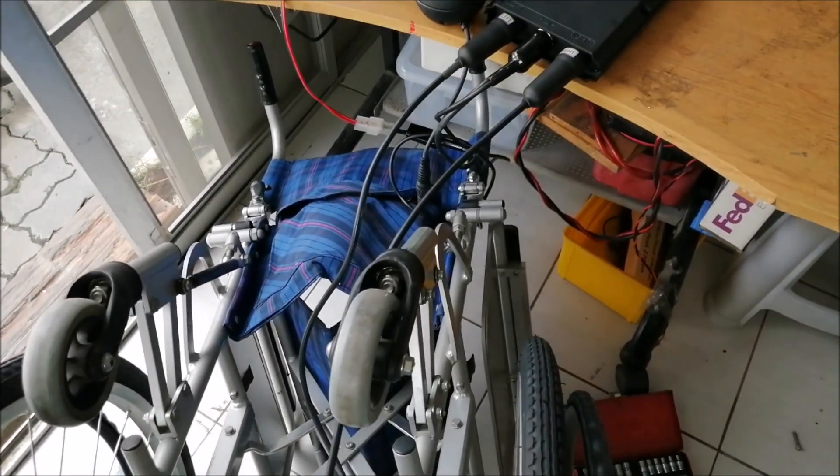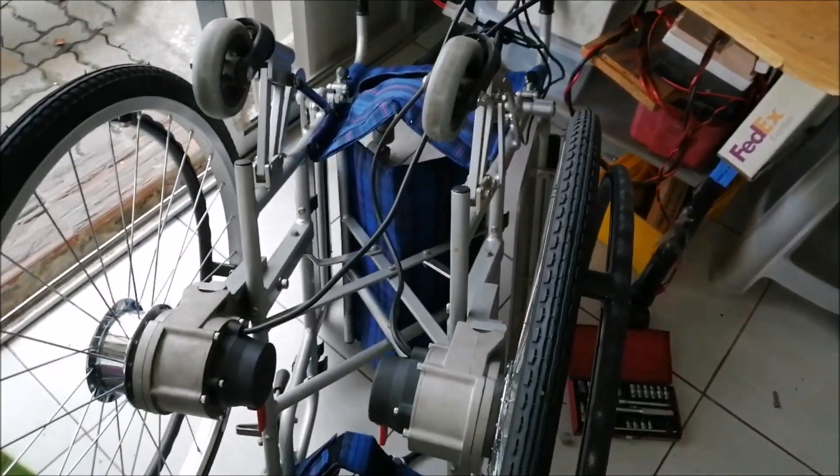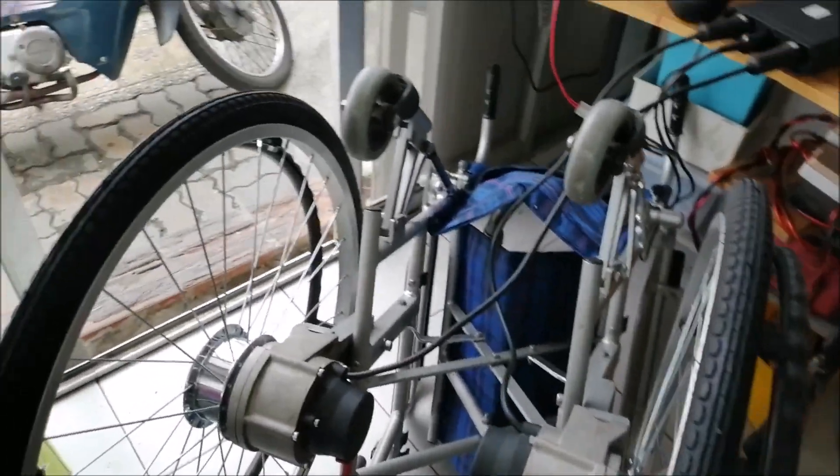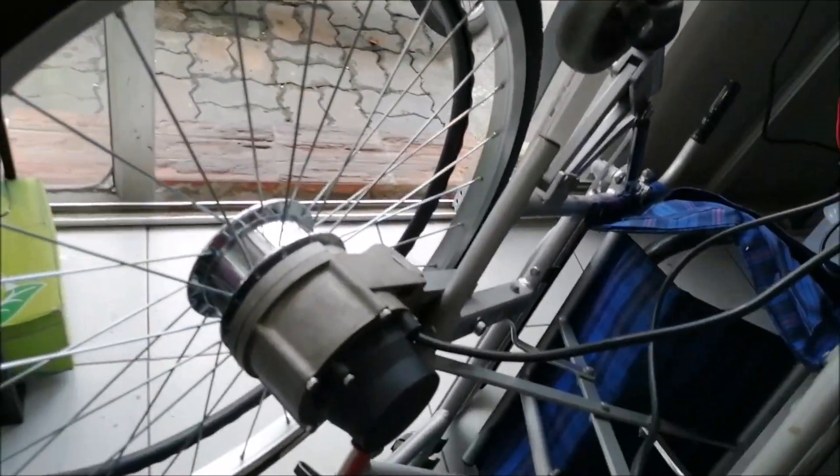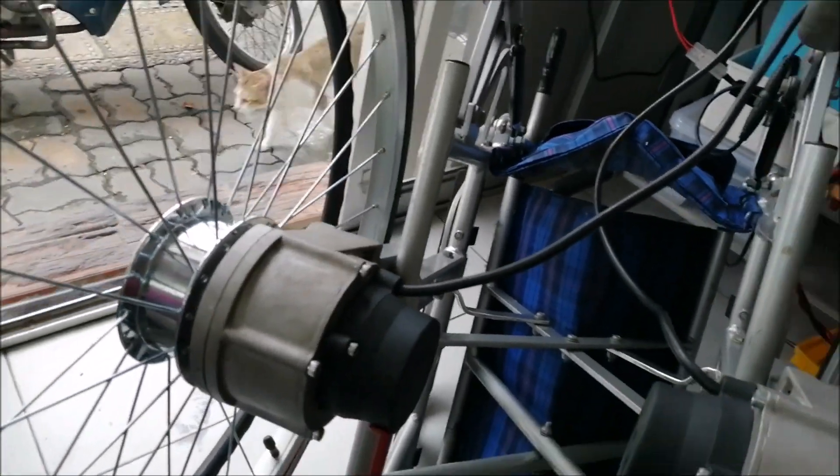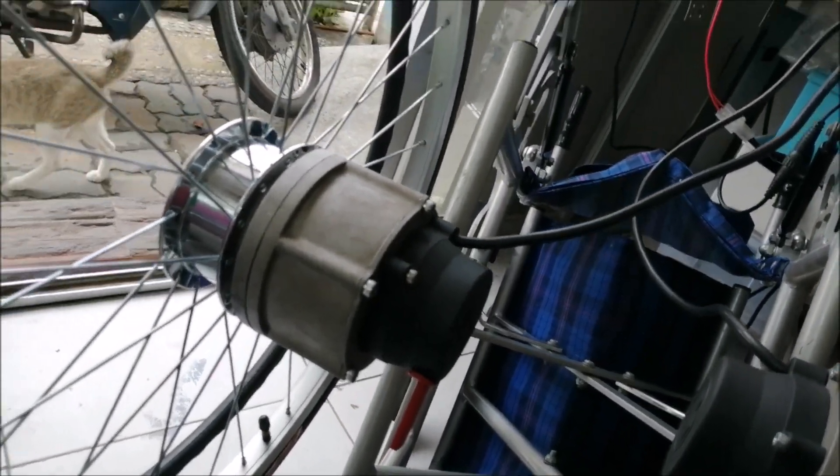The system is available in different wheel sizes. The wheels have a clutch, so if used manually the wheels spin freely.